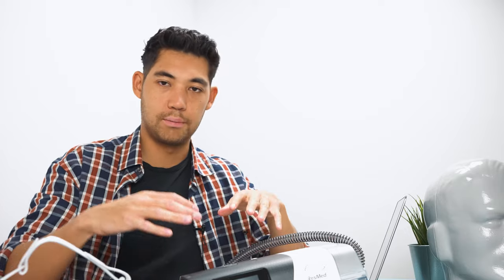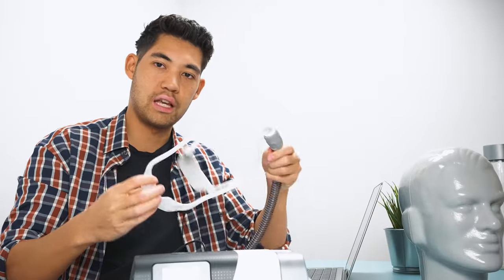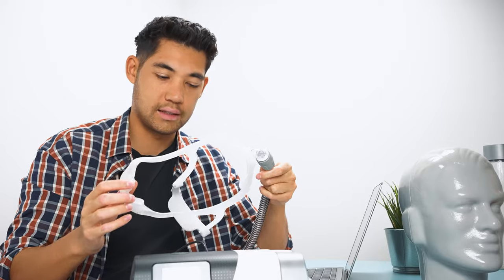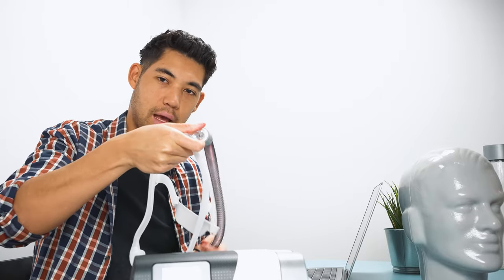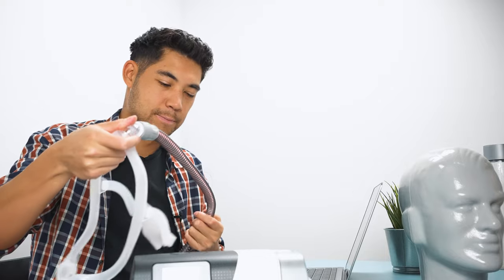The next thing I want to talk about is your placement of the tube and the placement of the machine. So if your machine's kind of in an area where you're finding a lot of weight on your face. So let's put this back together here. So say you're sleeping and this is in your mask and you're finding that this weight is kind of hanging on the end of your bed. And maybe sometimes it gets jammed between your bed and your nightstand or something and you pull and that creates a leak and you don't notice right away, stuff like that.